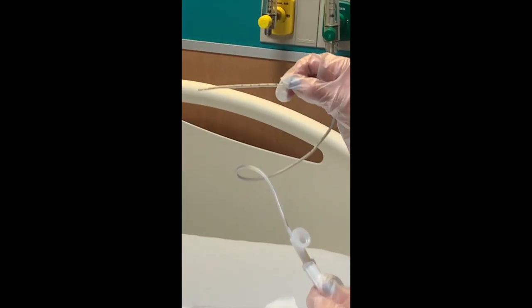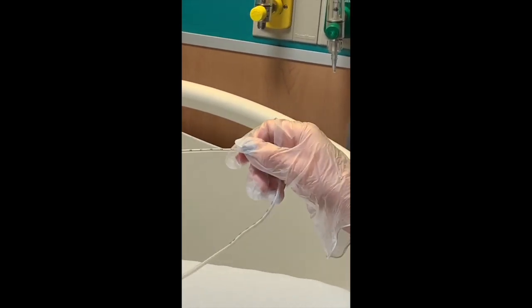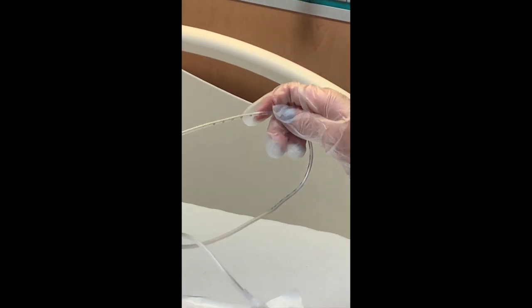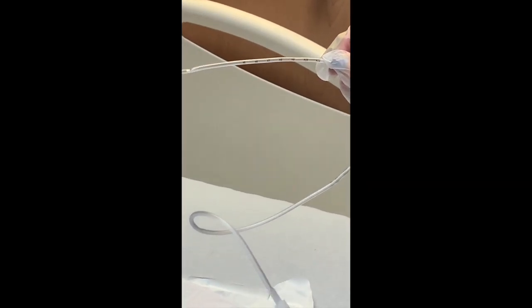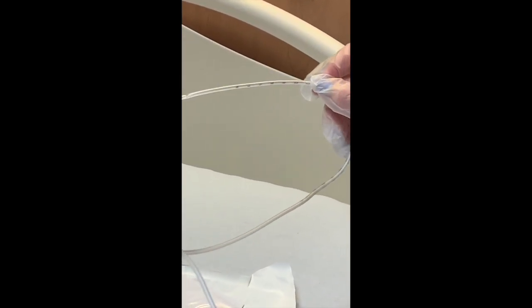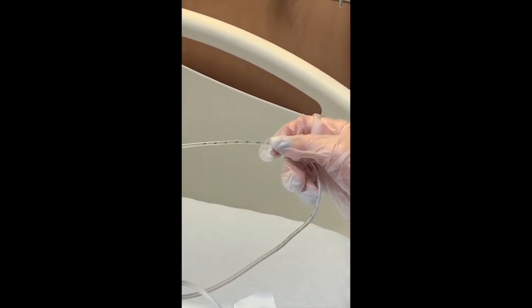You can either use this to suction orally or nasally, or like I said, we use it for trach suctioning and deep suctioning for our trach patients as well. You can see there are measurements on this suction catheter. A lot of times trach patients have an exact number or measurement that is known to be their optimal level of deep suction, so we use those measurements for that.